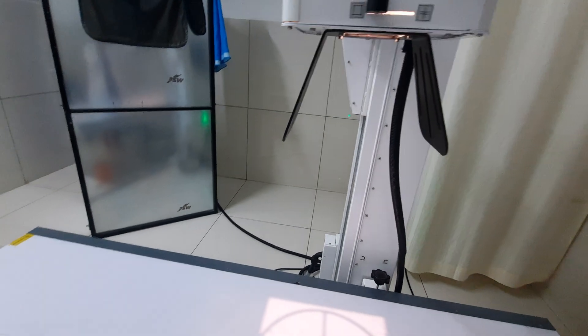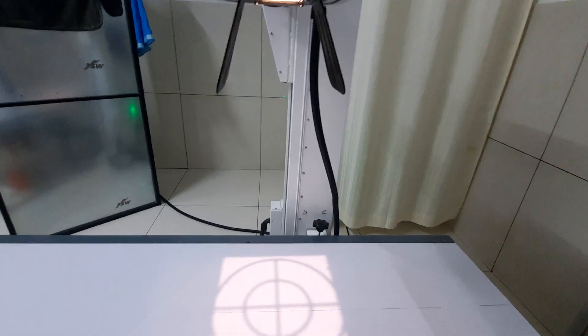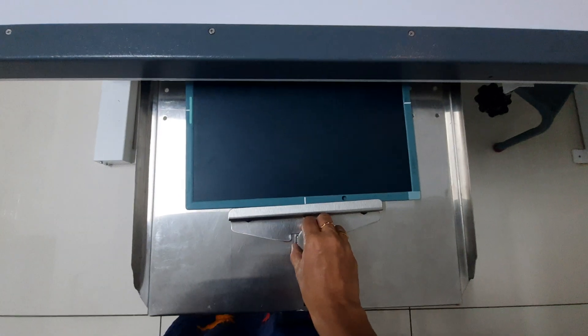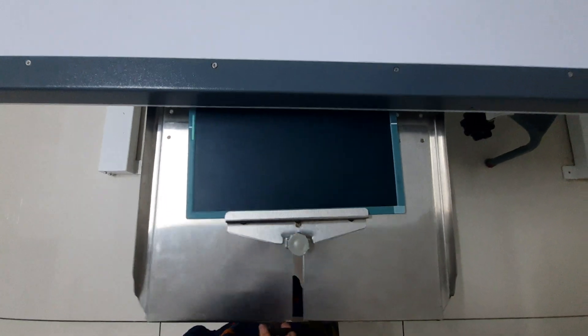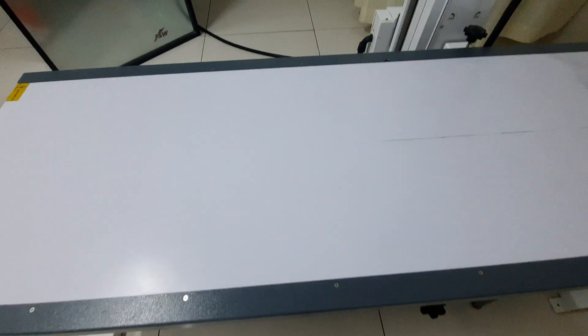This tube can be brought down or pulled up, which helps in adjusting the film focus distance — that is, the distance between the cassette and the x-ray tube. Under this table we have the bucky tray. We remove the lock, insert the cassette, then lock it and push the tray inside. This is called the bucky tray, and in it we keep the cassette to take x-rays.